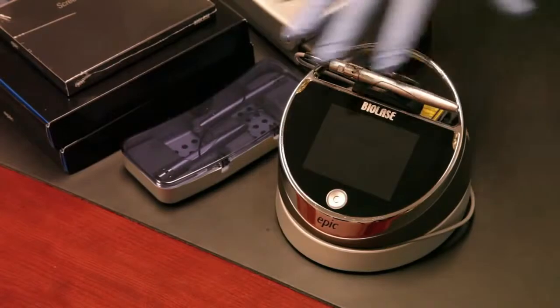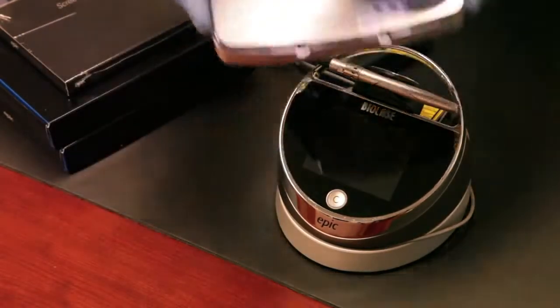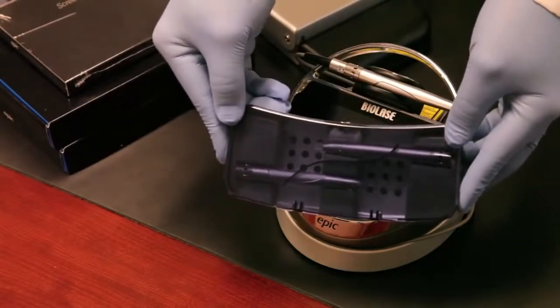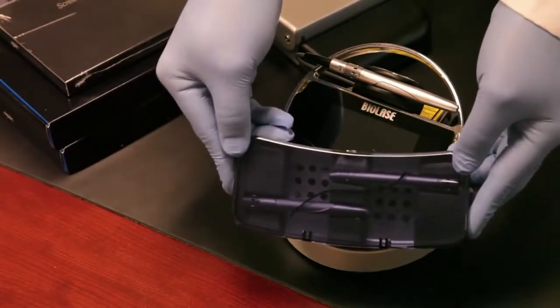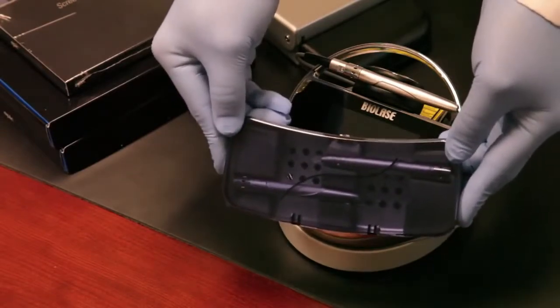In addition to the laser in the box, you'll also receive two surgical handpieces. We'll put these on in a moment and show you how they go on and off and how easy they are to keep clean with your autoclave.